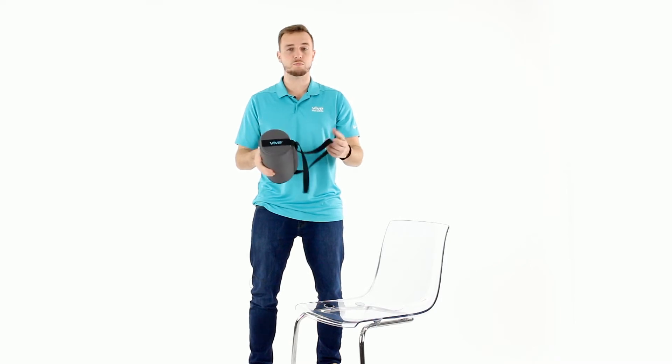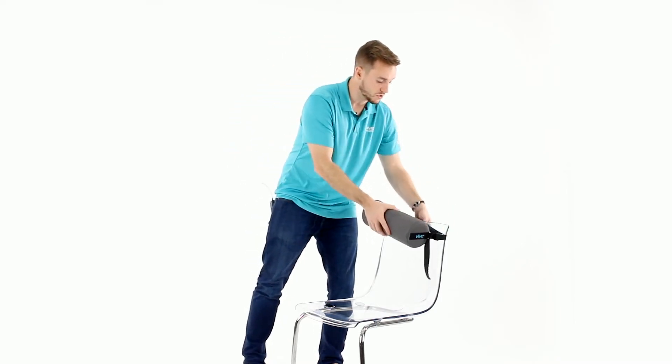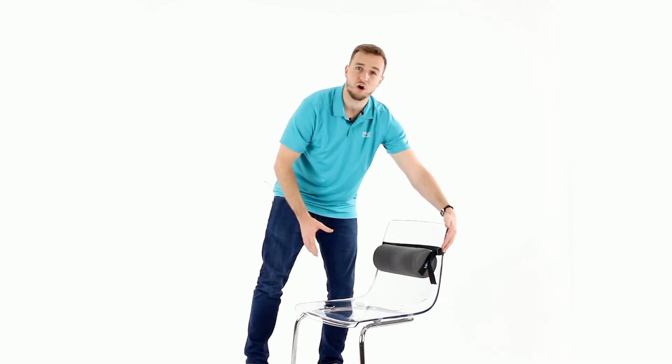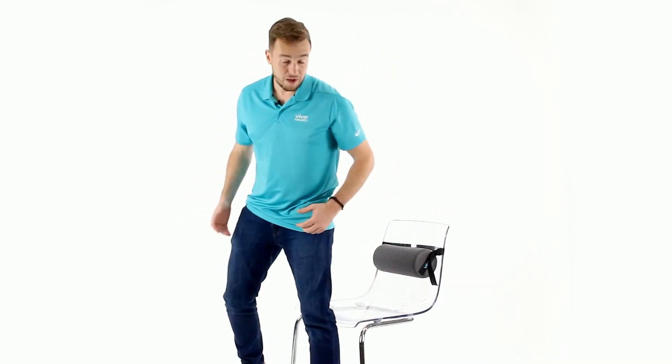Most people that use this product put it on the back of a chair, so they're going to utilize this strap. Maybe their desk chair, they could put it in their car, or at their dining room table as well. It's going to help support that lower back.